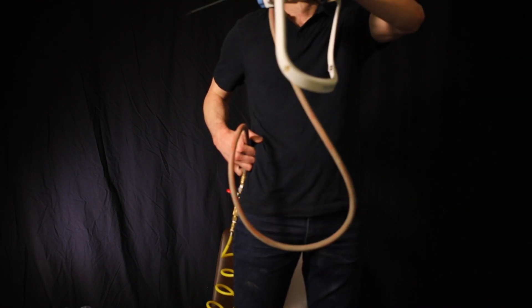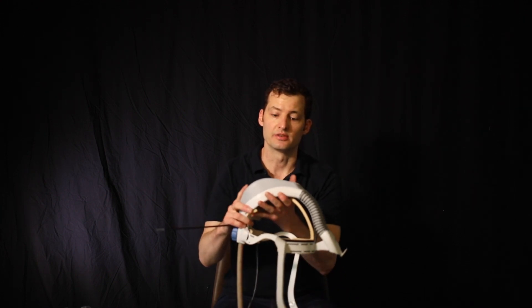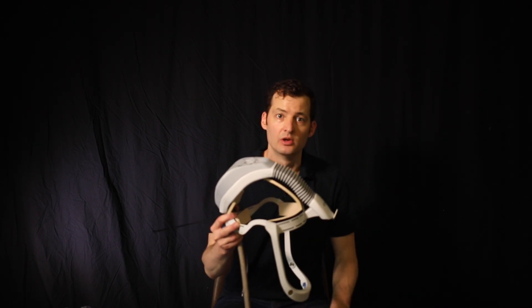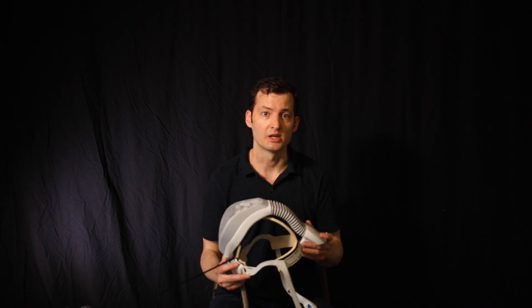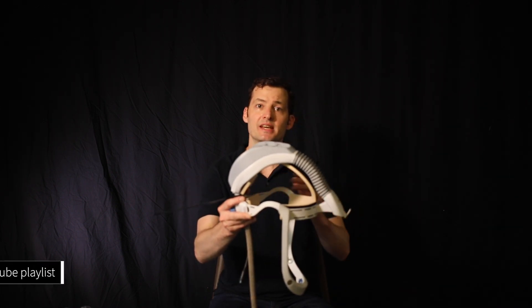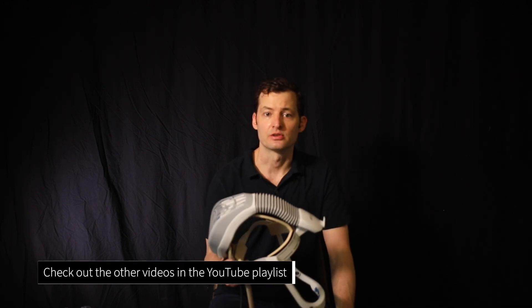This is going to be secured to your waist. You'll also want to put some tape over the top to make it more efficient and ensure that air is directed to the front of the mask. Afterwards you can put any covering over it — an ortho hood is ideal for this. If you don't have a Stryker helmet, you can also make this out of a welding helmet, grinding shield, or the face shield most people are wearing. Just secure this hose to the headset and then drape and tape the rest of the hood covering. It doesn't have to be perfectly airtight as long as there's a positive flow of air at positive pressure — that's all you need.